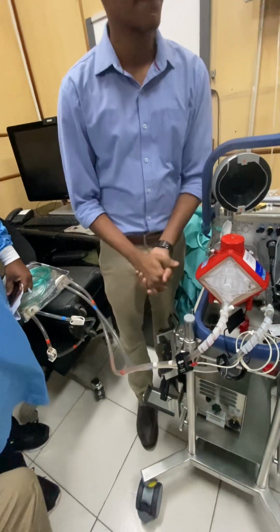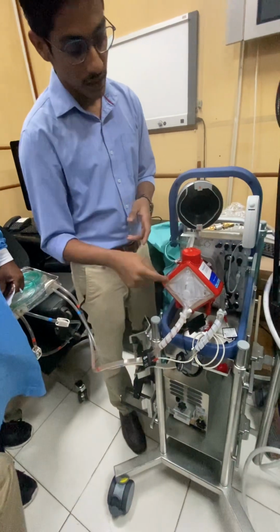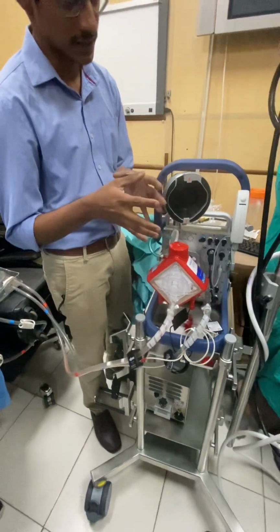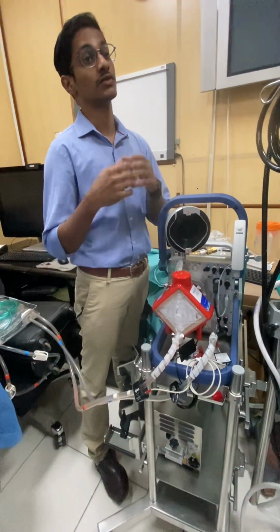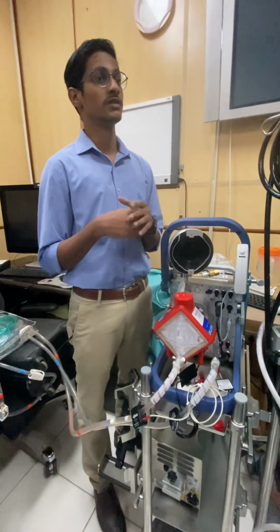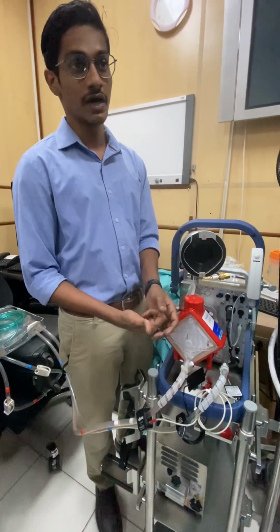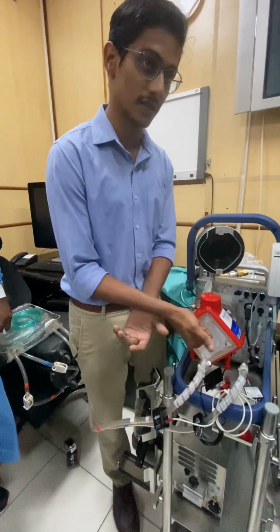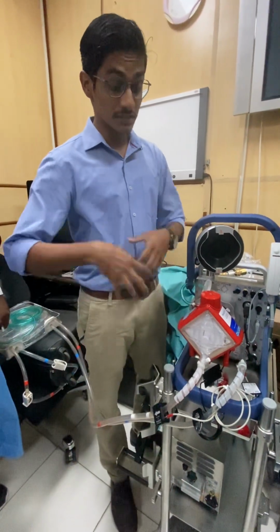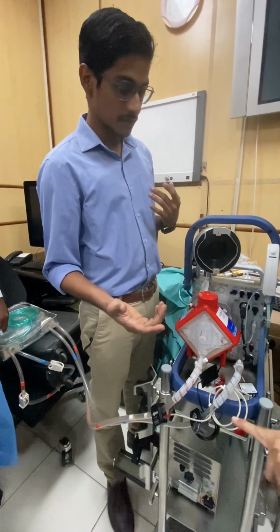But then why is there a bubble sensor over here? Sir, the bubble sensor is, for example, sometimes, as I said, after 30 days of usage or due to something, you want to check the oxygenator function, and you decide to take an ABG. Now the staff is taking the ABG, and we are manually, due to our mistake, human error, pushing air inside. That can happen. Or there is massive air. What will you do? If it comes, then what to do? You have opened that point. Yes. We can't do anything in this.